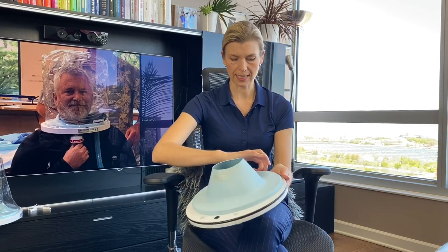As you can see, it is a solid plastic. There are no places where the moisture can get trapped or bacteria, so it prevents any mold growth, and it can be used for a long time for the patient. Also, it is very easy to clean, and all the instructions are on the website for how to clean these helmets, and it can be used for multiple patients.